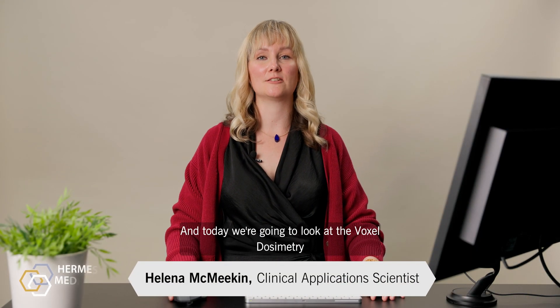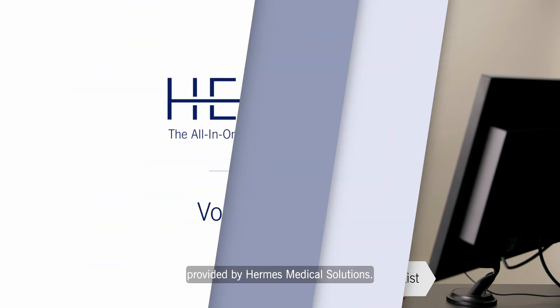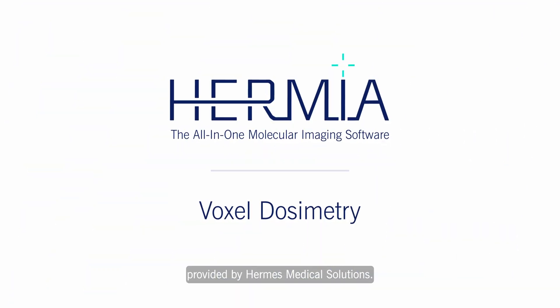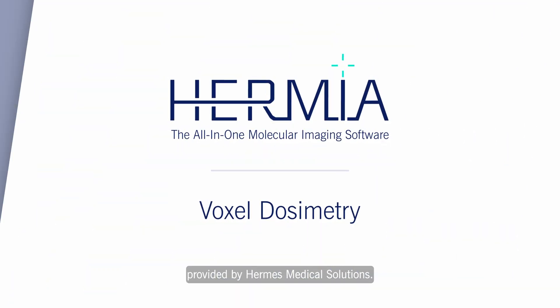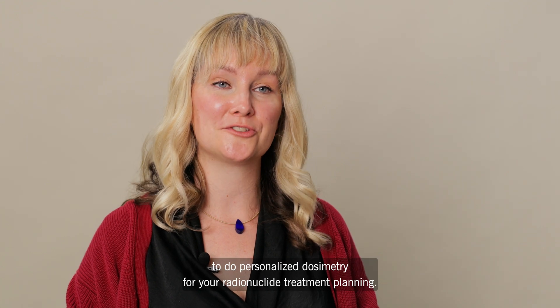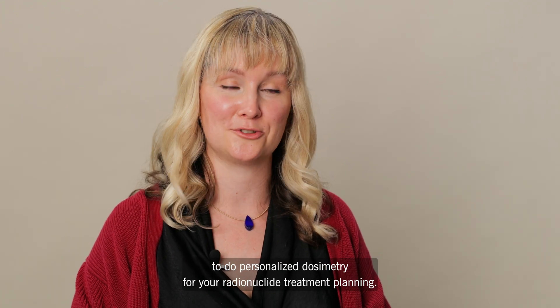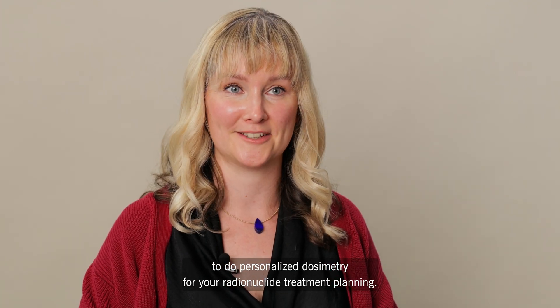Hi, my name is Helena and today we're going to look at Voxel Dosimetry provided by Hermes Medical Solutions. This program allows you to do personalized dosimetry for your radionuclide treatment planning.